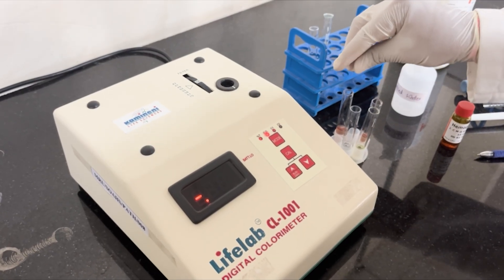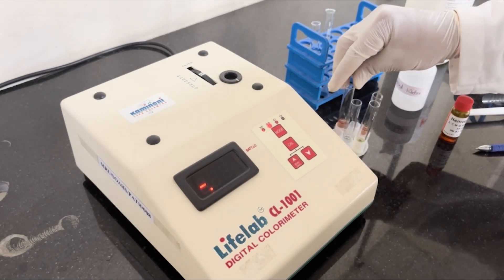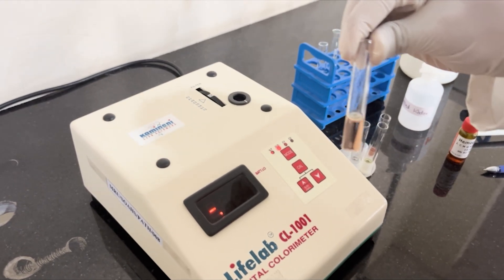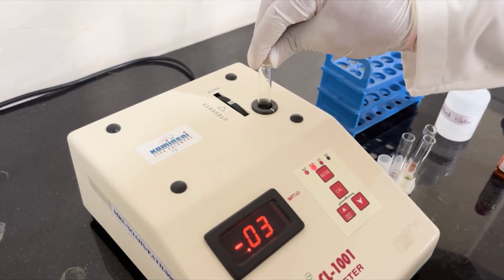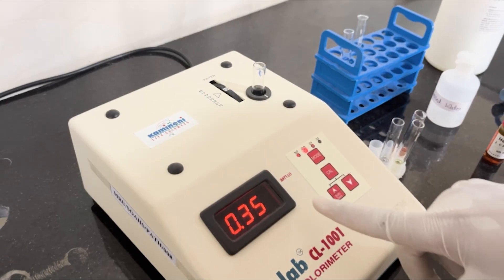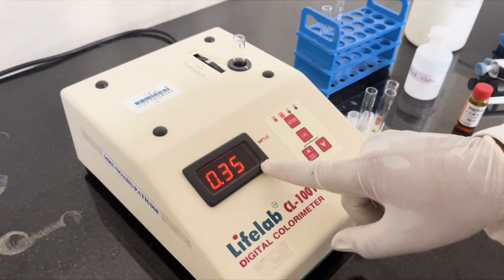And finally, read the absorbance of the test sample. That is 0.35.